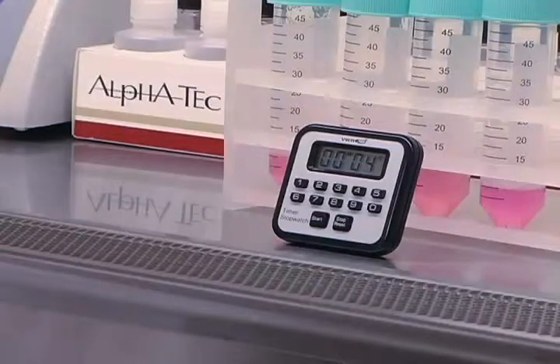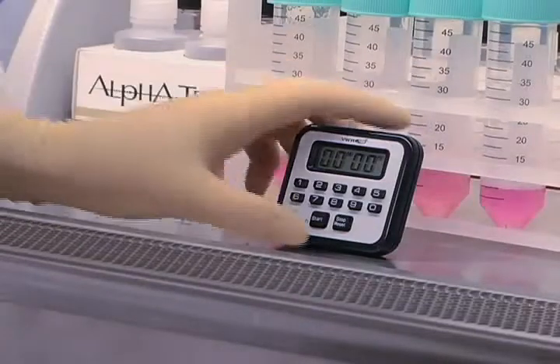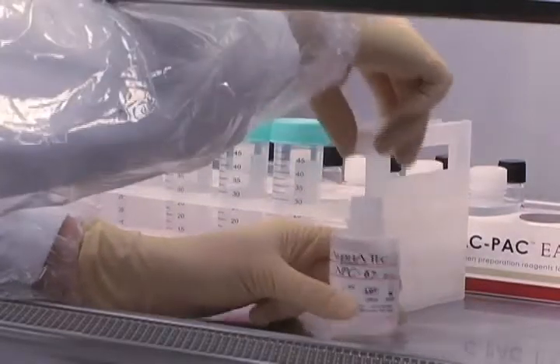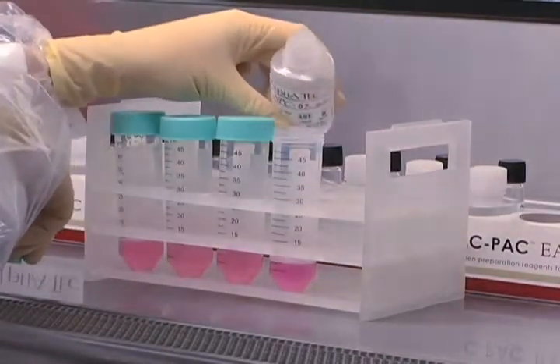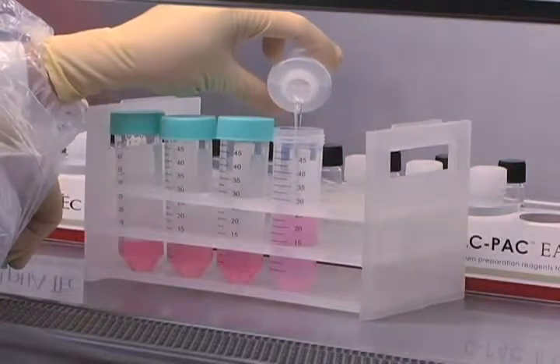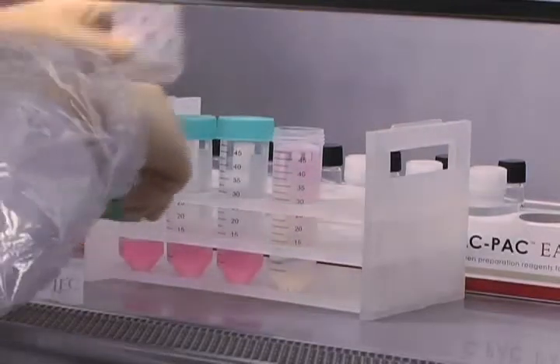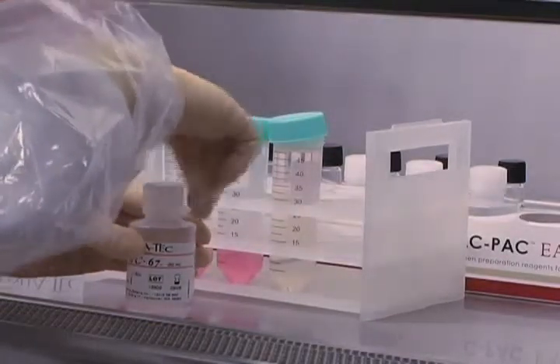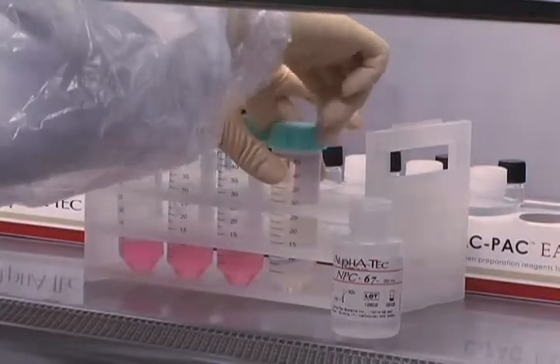Following the 15 to 20 minute decontamination period, add NPC67 AFB neutralization buffer to each sample until the solution changes from pink to colorless. This color change indicates that the sample pH is below 8.1, the critical pH at which mycobacteria are no longer in danger of die-off. Once the sample has turned colorless, do not add any more neutralization buffer in order to preserve the proper pH. Use one bottle of neutralization buffer per sample, discarding any buffer that remains in each bottle to avoid cross-contamination.